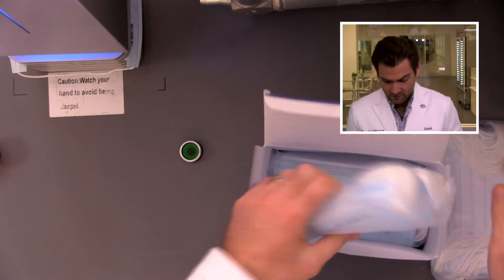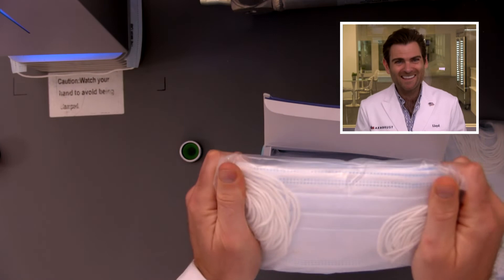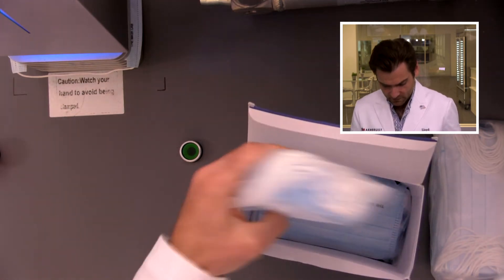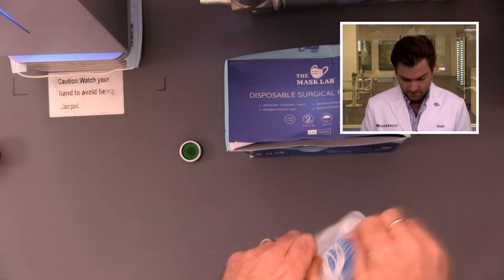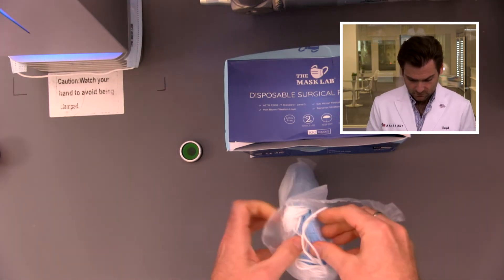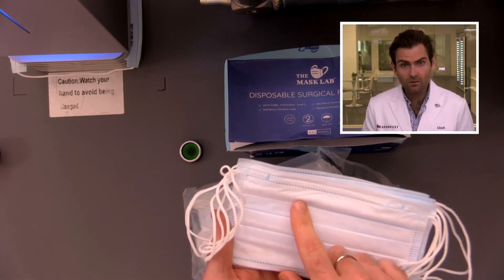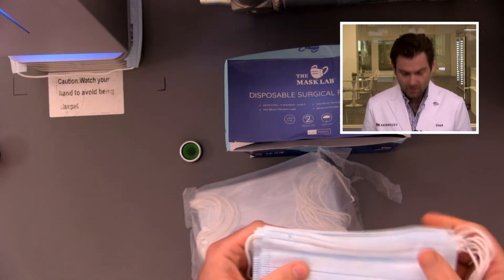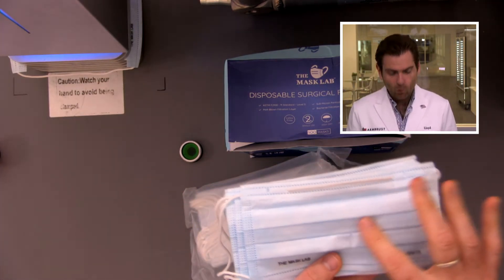This is a really nice package — the thickness of the plastic is very substantial. It looks like there are four inner packs of 25 each. The masks themselves are a little more wrinkly than I'd like to see, but the spunbond quality is insane — really good. I can just tell the quality of the spunbond layers is amazing.